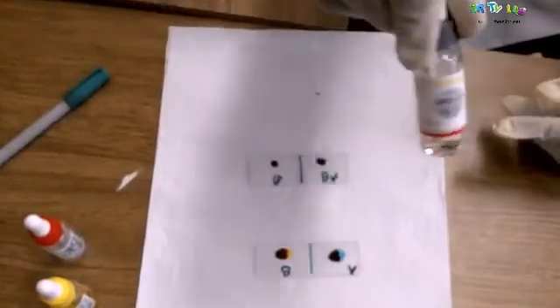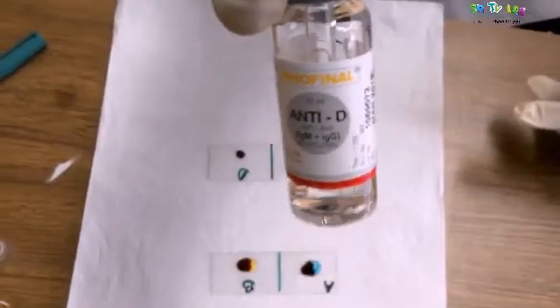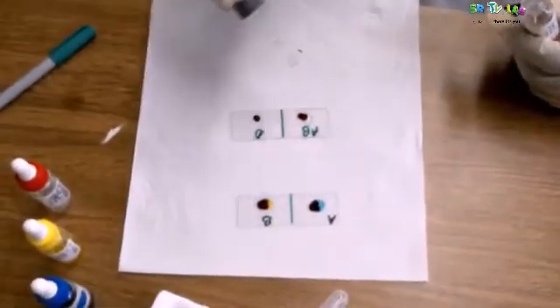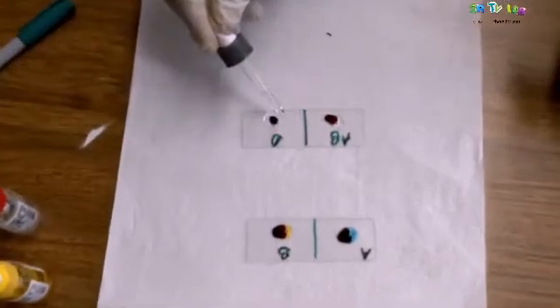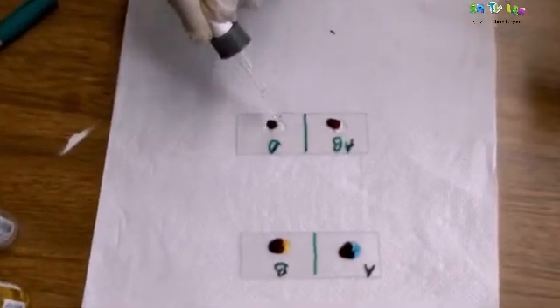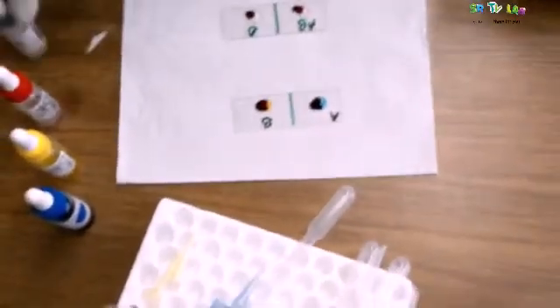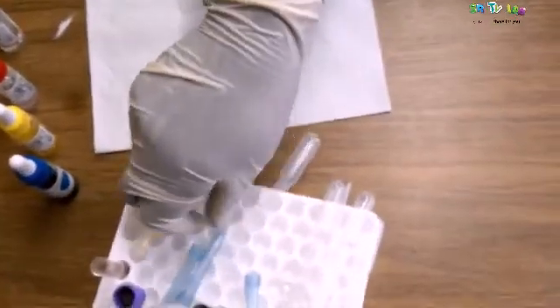We are mixing the antibody anti-AB with AB. Here is the antibody anti-D. We are going to mix it with D. If there will be agglutination with D, it is an indicator that this person has rhesus positive. Now let's mix.